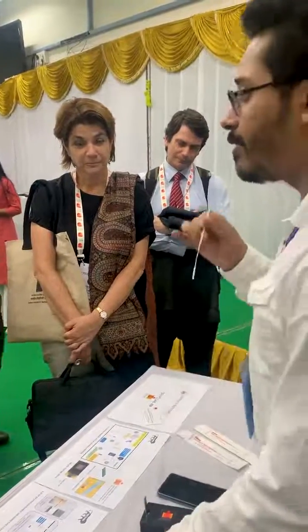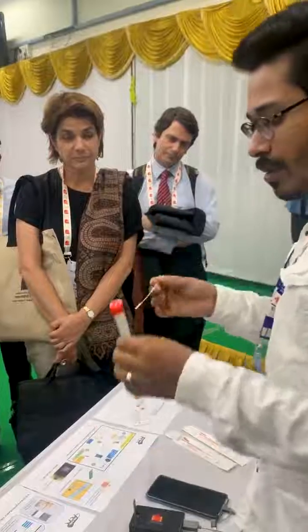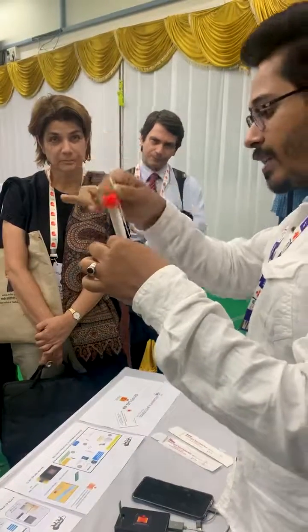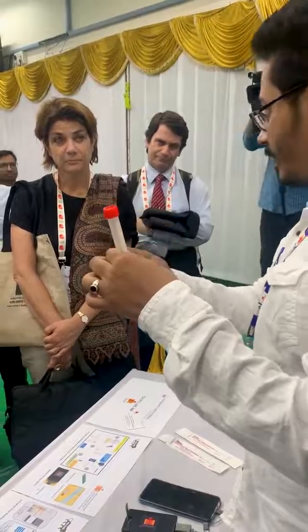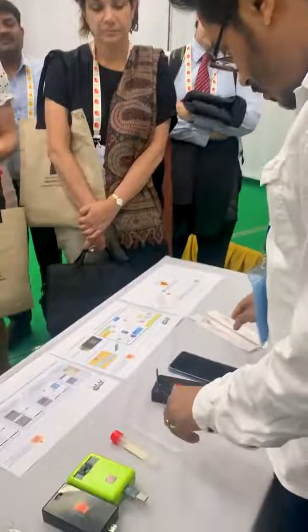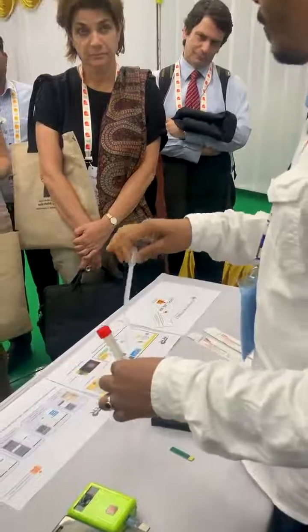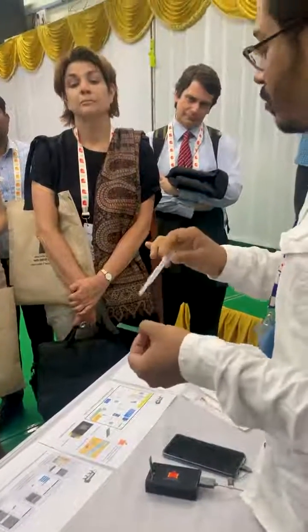We have to inactivate the virus after taking the sample. For that, we use these buffers so that the virus gets inactivated and the RNA is extracted. Then we have to test the sample — just take a little bit of sample and put it on top of the device.